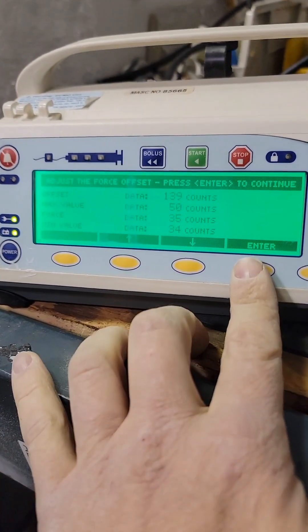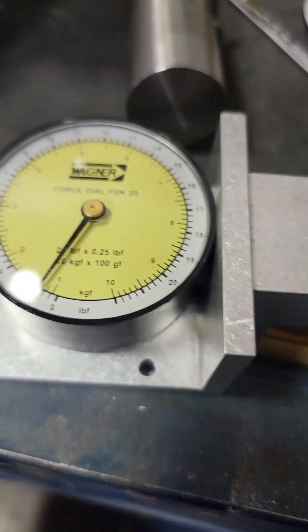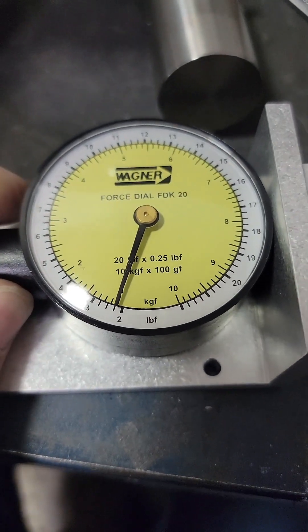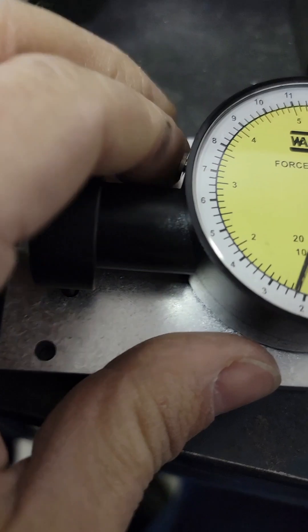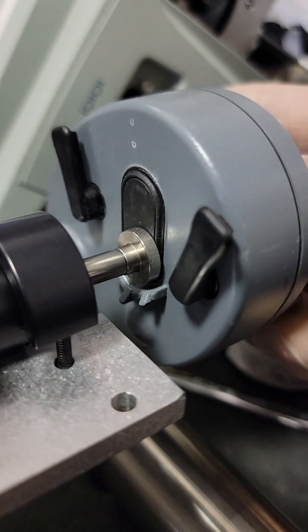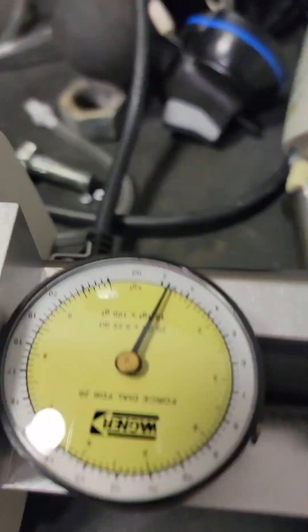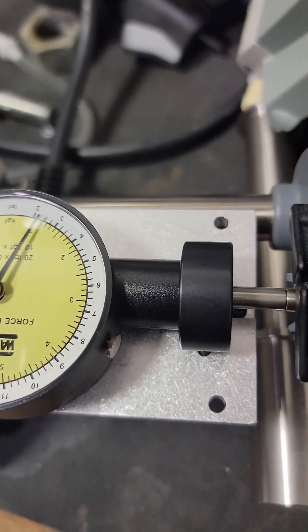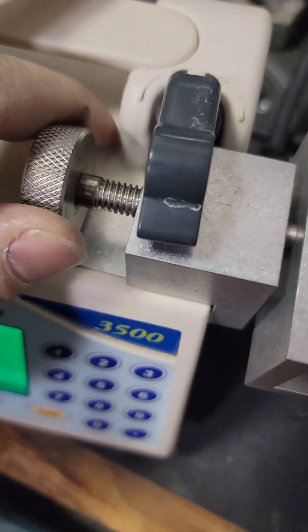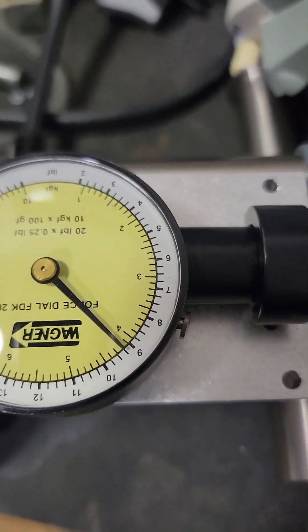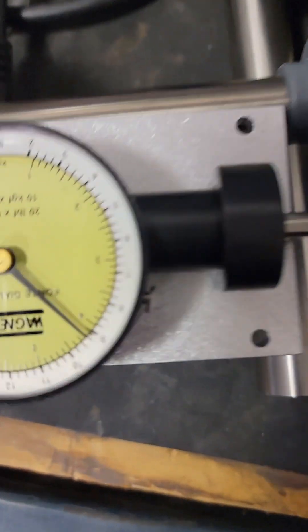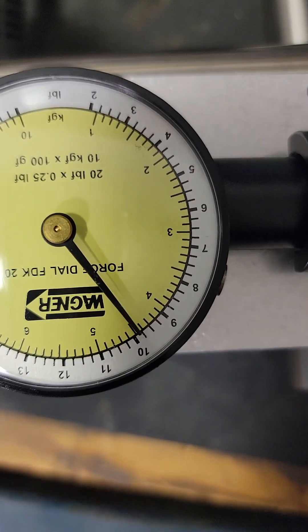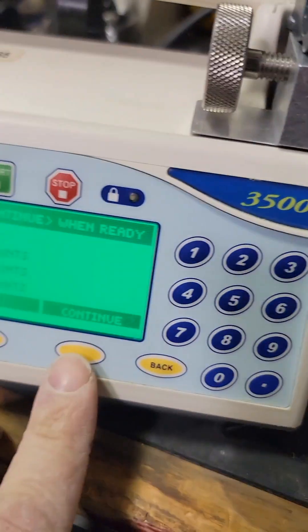Now that the clock has run out, it's about 40 seconds, press enter. Now for the high standard. On our force gauge it's zero. Place this on here, barrel clamp, push down here. This is kind of a square cutout, so place it like that, flippers press against. Now we're going to adjust, press this knob until this gets to about 10 pounds. There we go, and press continue.